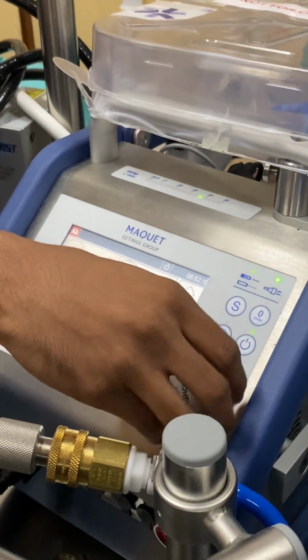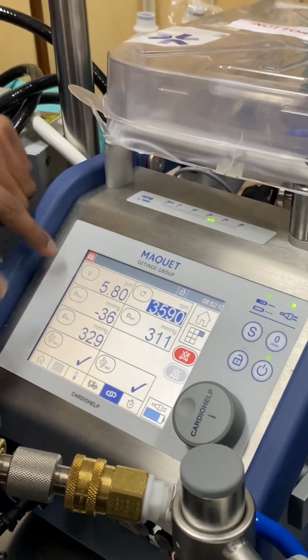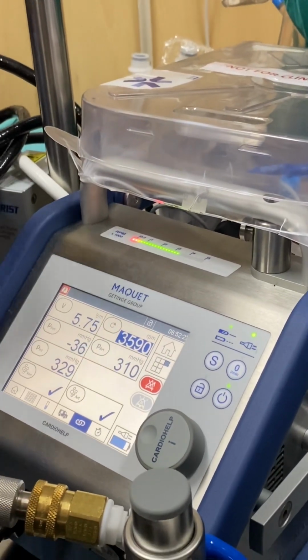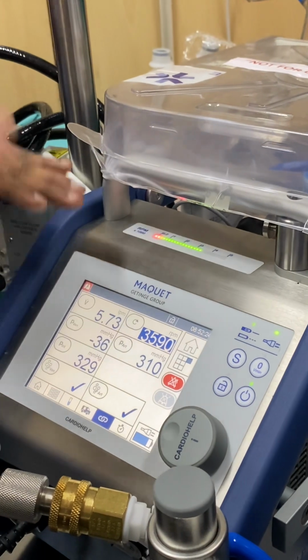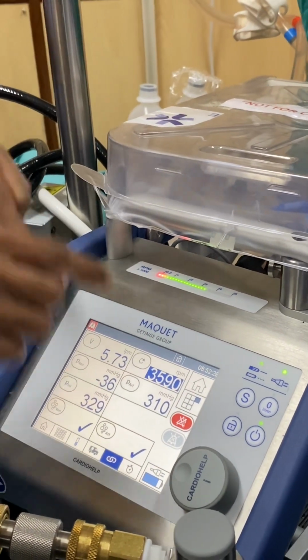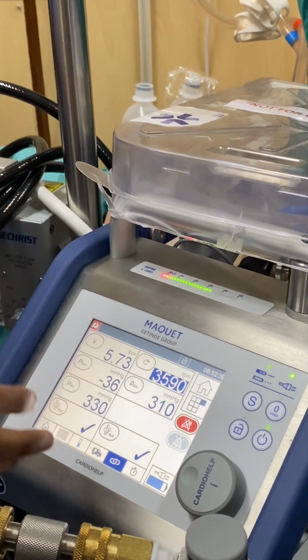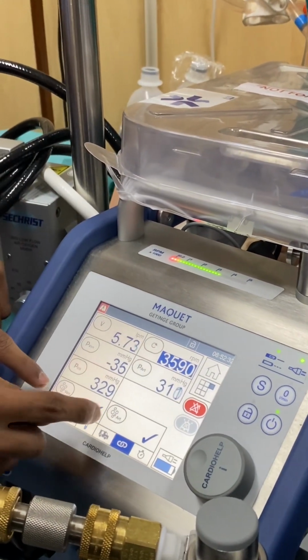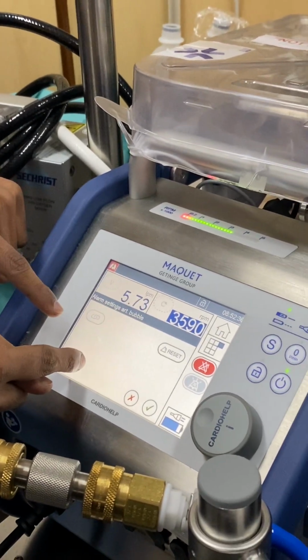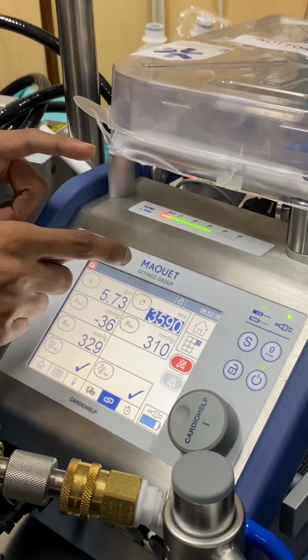The machine will do it. Then we have three pressures. For all three pressures, we have warning and intervention limits. If intervention is turned on, the machine itself will reduce the pressures. That will be done by reducing the RPMs. Now, the next thing is venous and arterial bubbles. If any arterial or venous bubble is detected, the machine will give you an alarm.